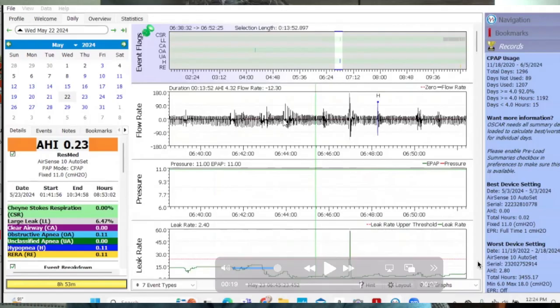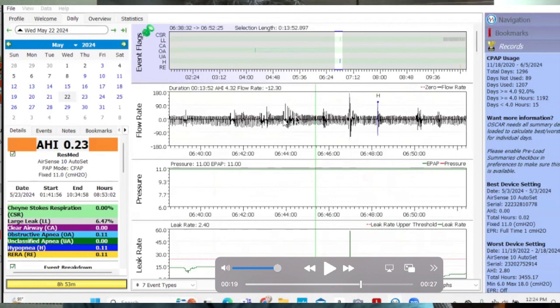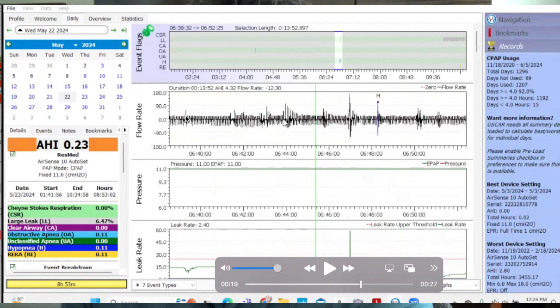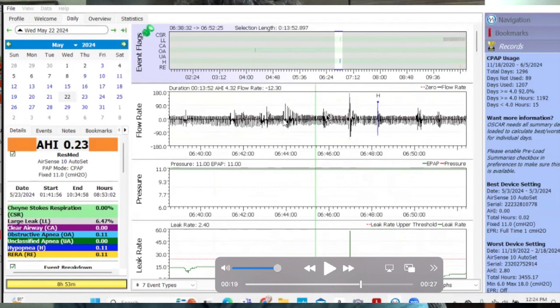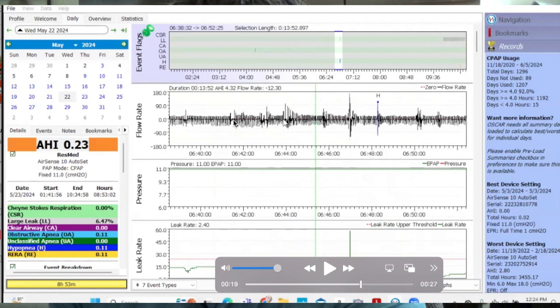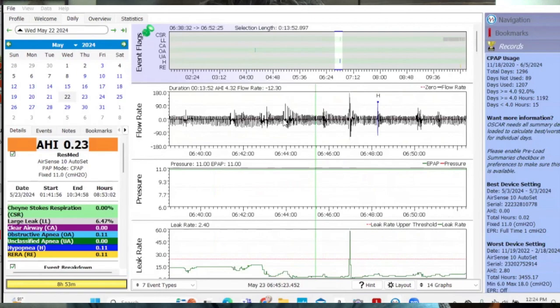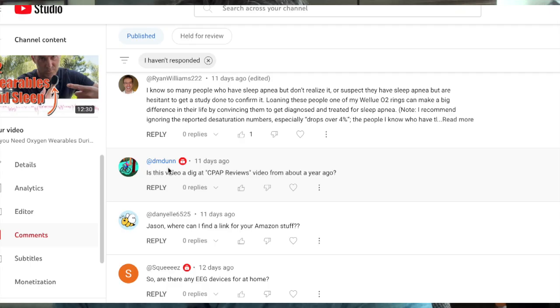Let me go ahead and go back to this. So you see every one of these spikes here again, each and every one of these is movement. And I can even tell you this one's a position change or a big full body adjustment, as is this one, as is this one, as is this one. This one is not. They're staying in the same position, but there's movement. We have movement here, no position change. Movement here, no position change. Movement here, no position change. And again, movement here, no position change. You can see the difference. You're going to get this like flat spot with a large hump in front of it. That's a movement with a position change. Every time I have a sleep study that I'm scoring, person moves or does like a very big full body adjustment, but almost nine times out of 10, body position change.